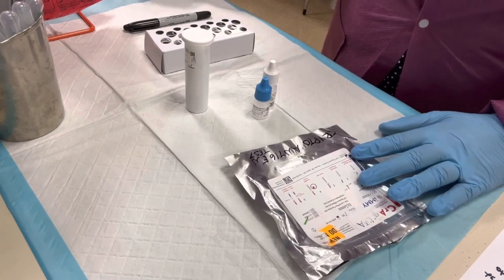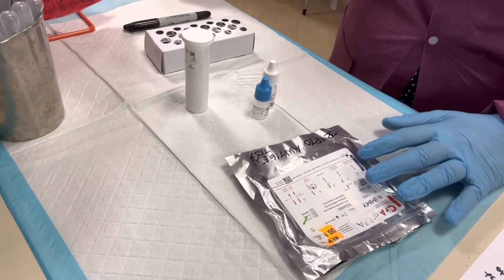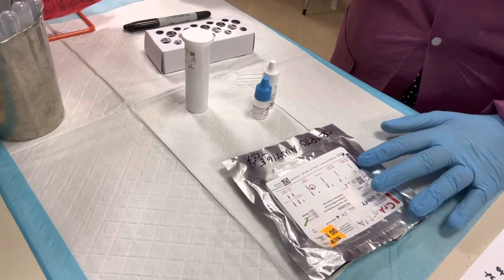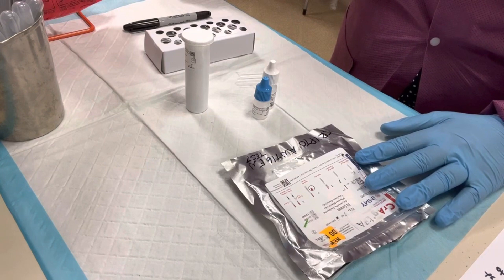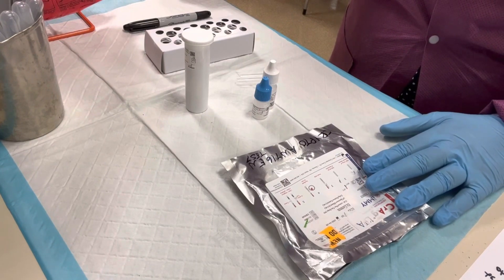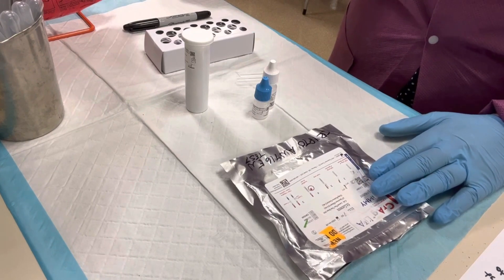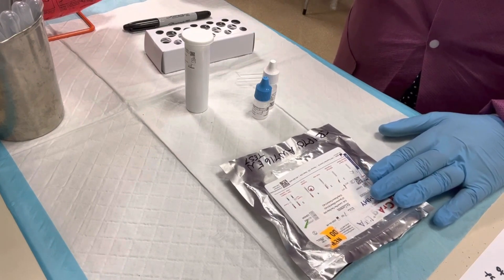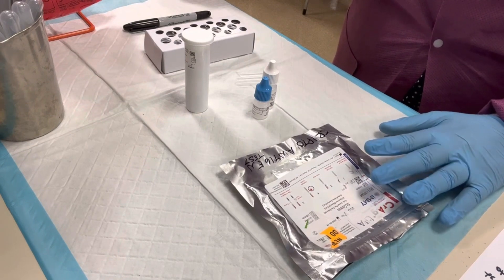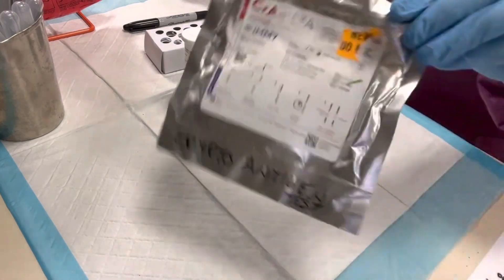Cryptococcus infection is caused by the fungi Cryptococcus neoformans and Cryptococcus gattii. Cryptococcal infections can occur in immunocompromised patients, and most specifically in patients with an HIV infection. This test can detect cryptococcal infections before they lead to cryptococcal meningitis, which is deadly for the patient.